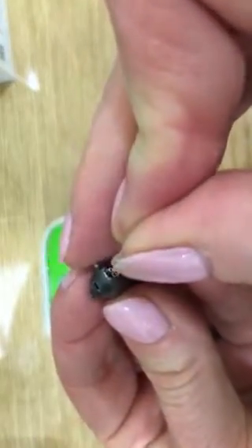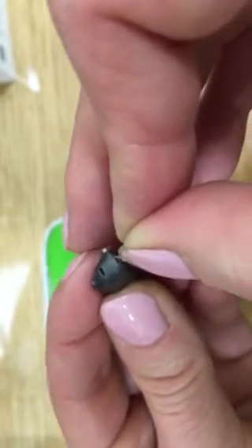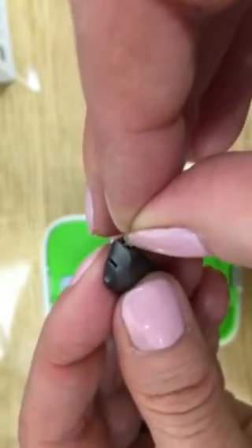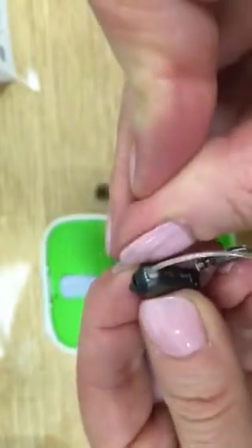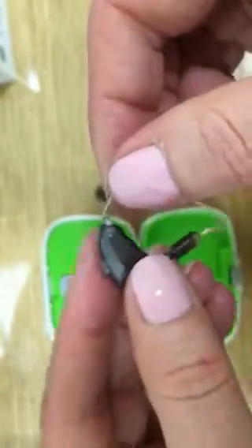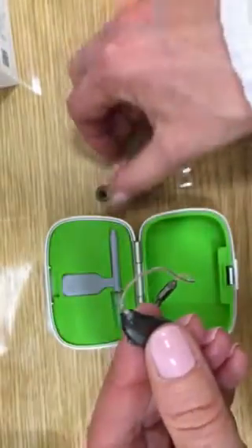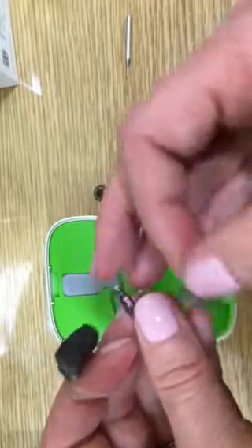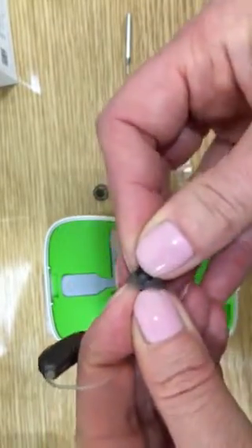We then carefully line up the pins with the socket and gently float them around until they find the holes. Once they're in, click the pin back into place, give a short tug to make sure it's locked, and carefully place the dome back onto the receiver.